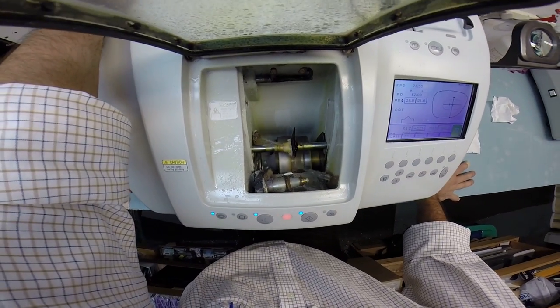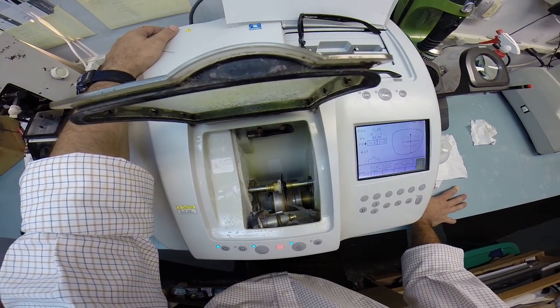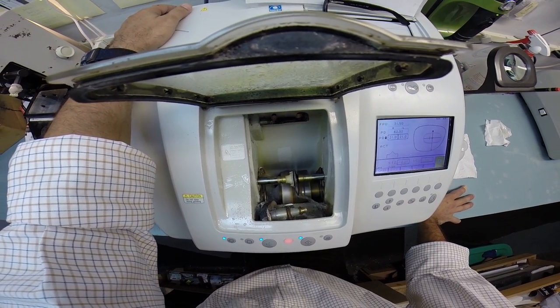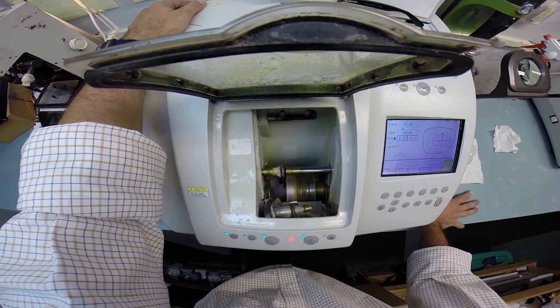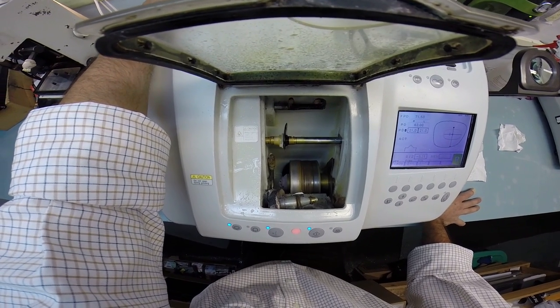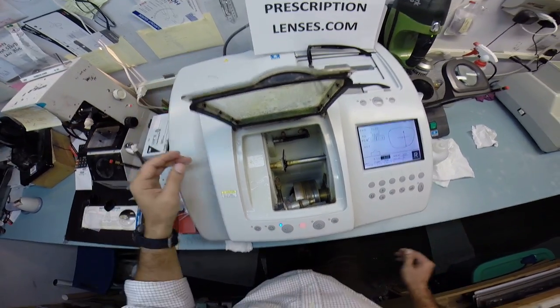I'm going to make sure these are very precise and fit perfectly. I know how engineers are. They're going to get their calipers out and measure and make sure everything is done correctly. But I do have one question. If you wanted these cut correctly, why did you ask me to do it?